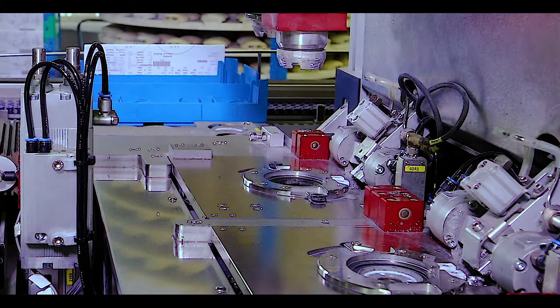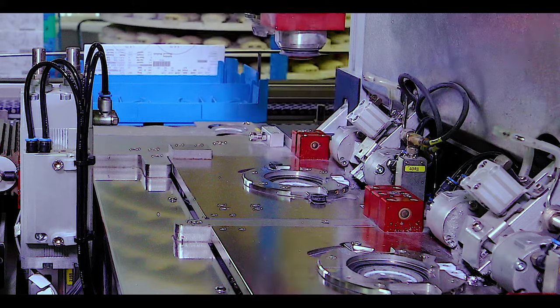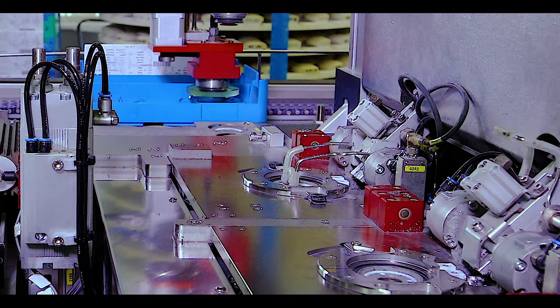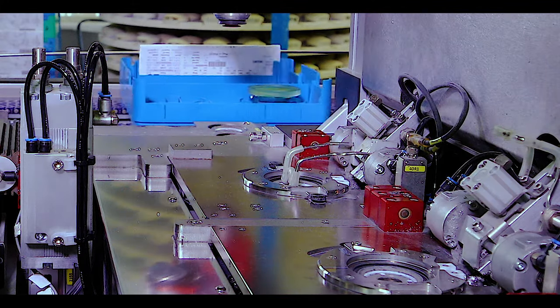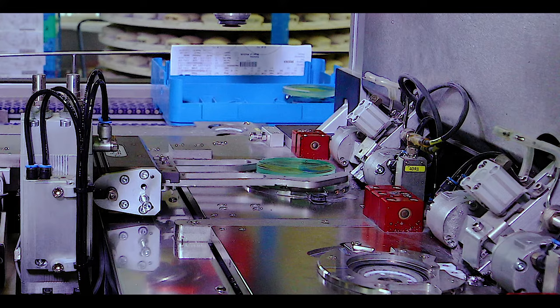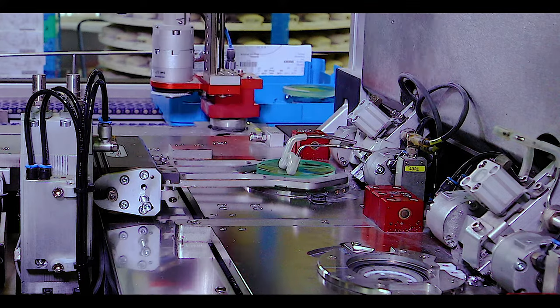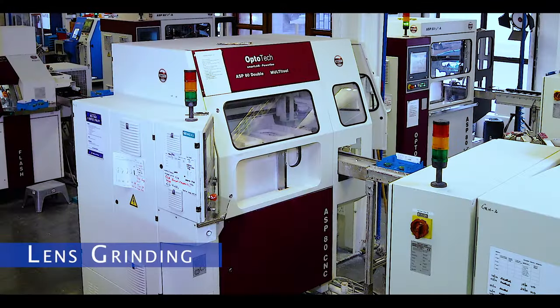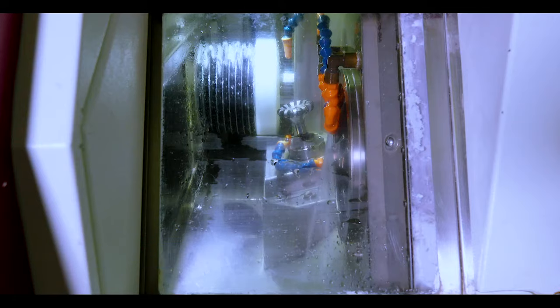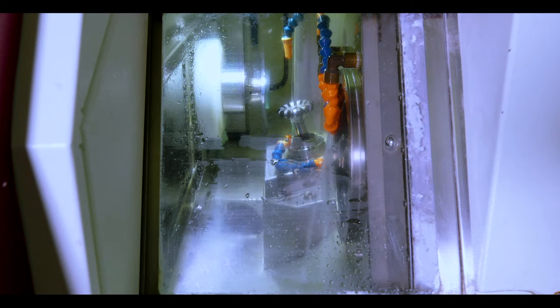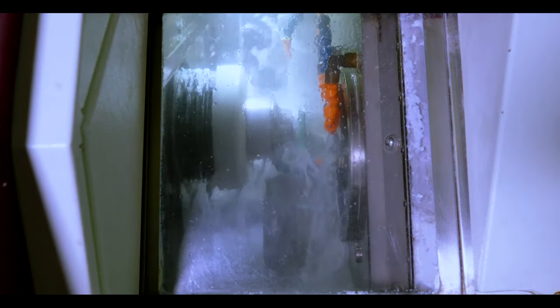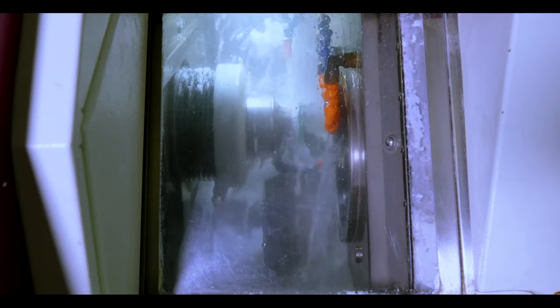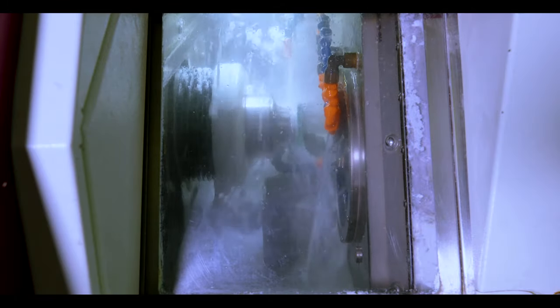The centre of the block will become the optical centre of the lens. This is the point of best vision in the lens. Next, the lens material, known as a blank, is attached to the block and is inserted into the generator and aligned. The generator grinds the required curves into the backside of the lens blank.